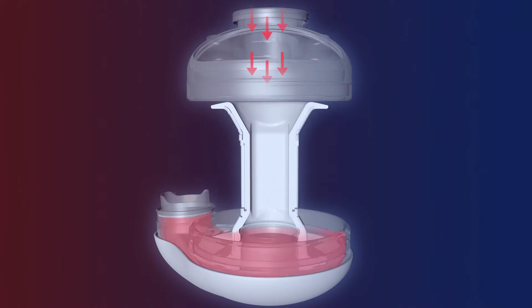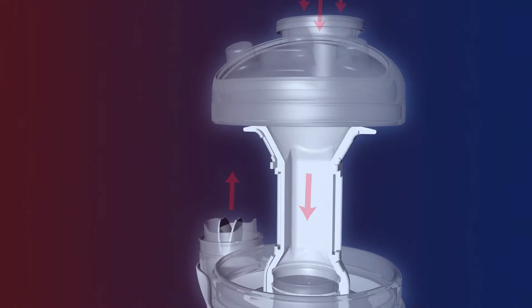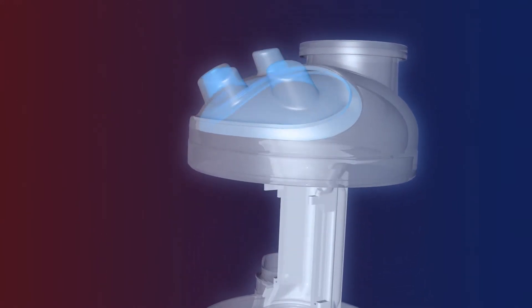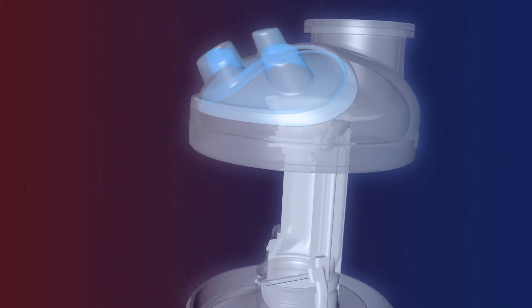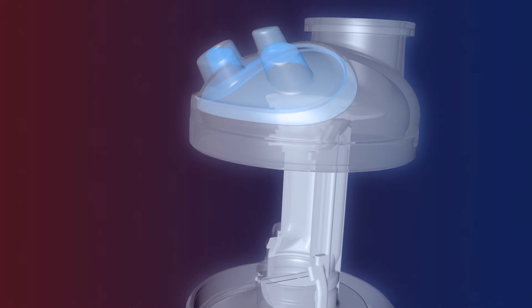To avoid a vacuum being created in the atrium when the valve cylinder moves towards the ventricle, the compliance membrane, which is integrated into the atrium wall, is designed to directly compensate the lack of blood returning to the atrium by decreasing the internal size of the atrium.